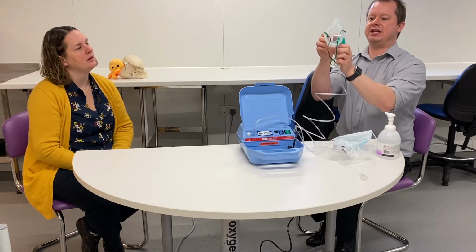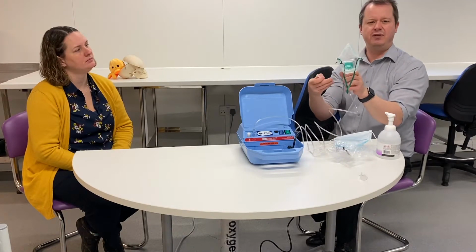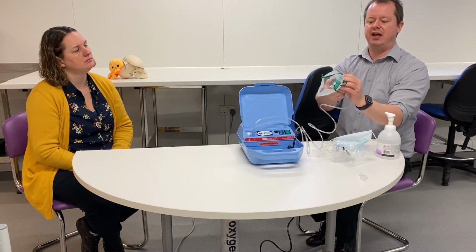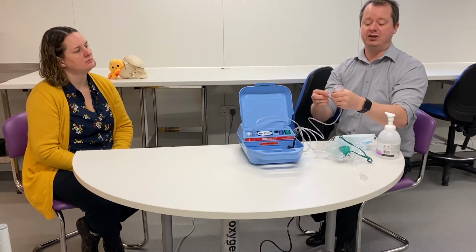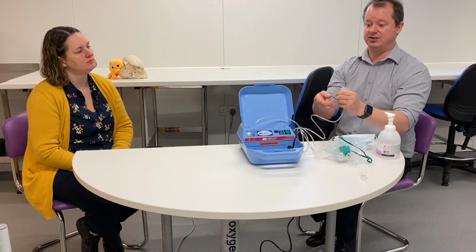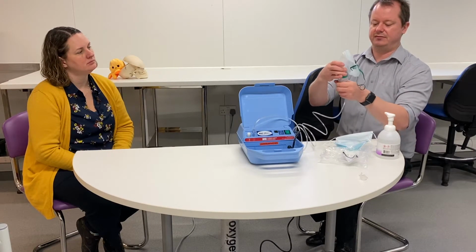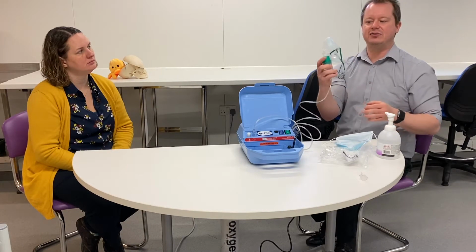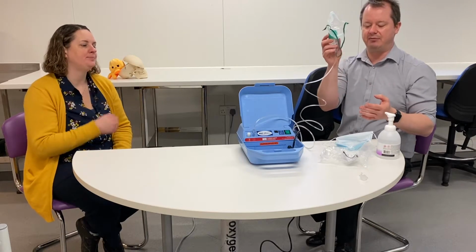Our nebulizer is all set up and ready. Now we need to get the drug into the chamber. You can take the lid off and put the drug into this chamber. That's the proper way to do it. Some people will squirt it directly through the mask, because essentially it's just a hole into this chamber, but it's best to take the lid off. Bear in mind that it's not sealed, so if you turn it upside down, the drug will leak out of the mask, so you've got to keep it upright.